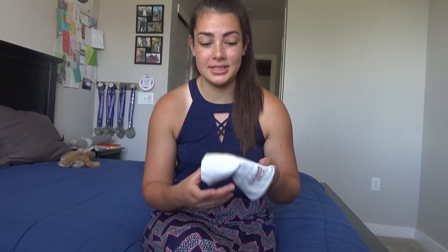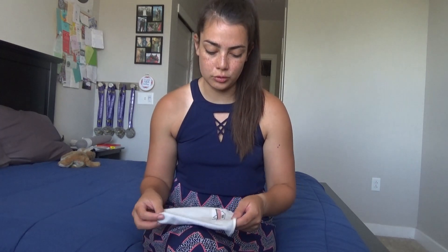Underliner — my favorite brand, my favorite type of sweat sock. Any sweat sock does its job, but the underliner has silver, I think, and it's moisture-wicking. I don't really know how things work. I told my prosthetist about it and he asked if I had my old one. I said I do, but all the lettering came off. Because these you can literally just throw in the washing machine — I don't dry it, but I throw it in the washing machine and then let it air dry.